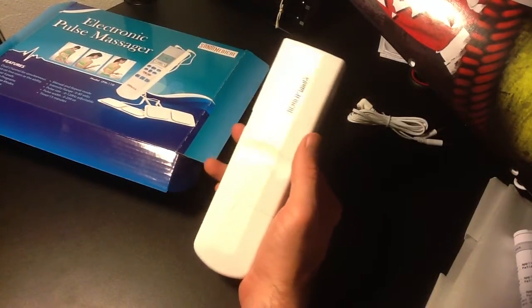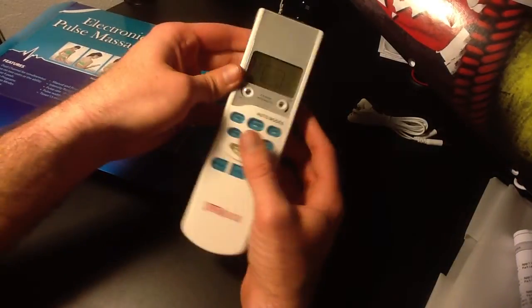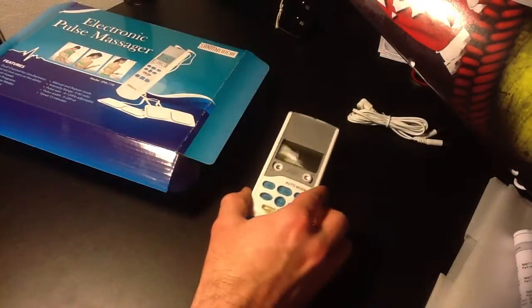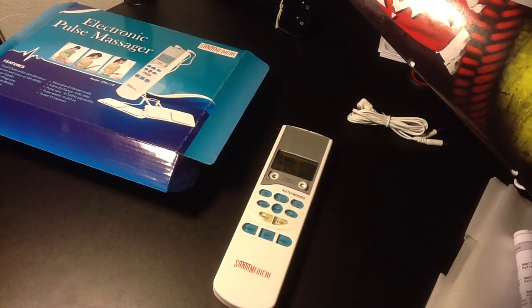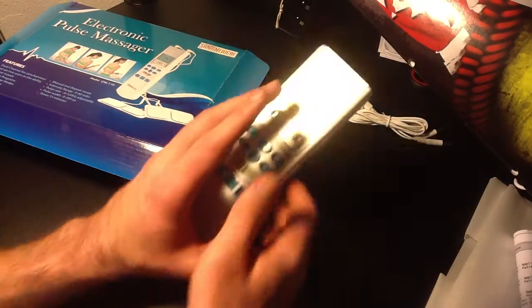These little devices are in hospitals. They give them to patients, and they range in price from a couple hundred bucks to a couple thousand bucks. But from what I've researched, what I've been told, and in my experience using this, they're all pretty similar.